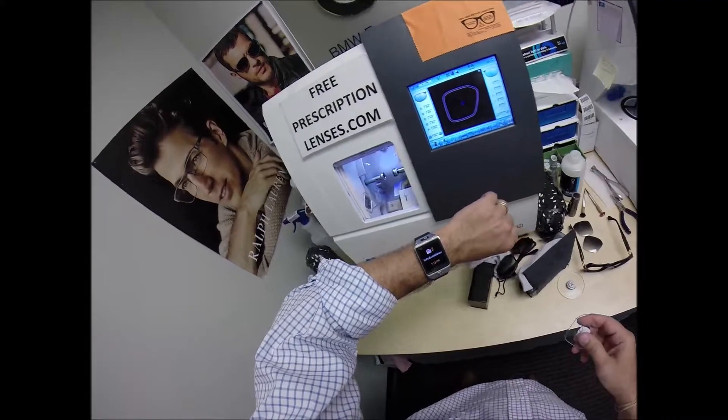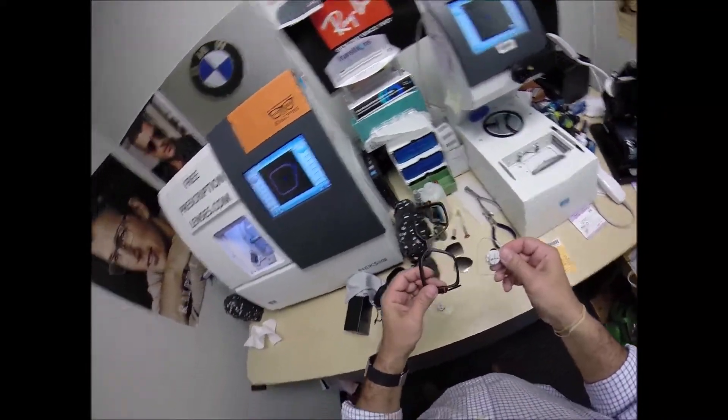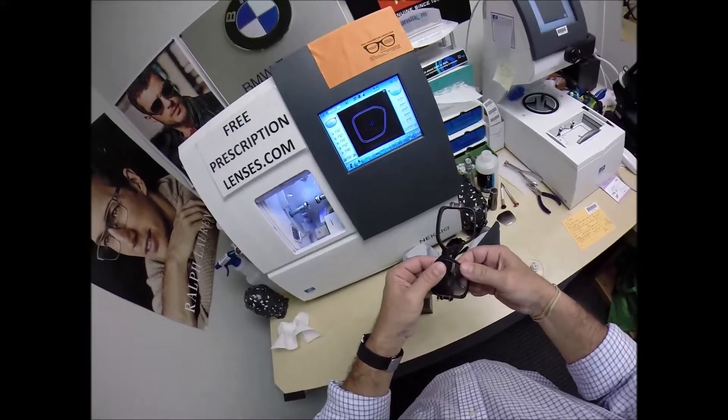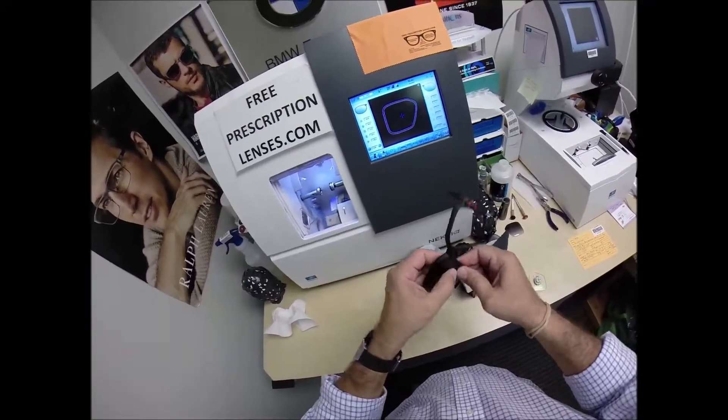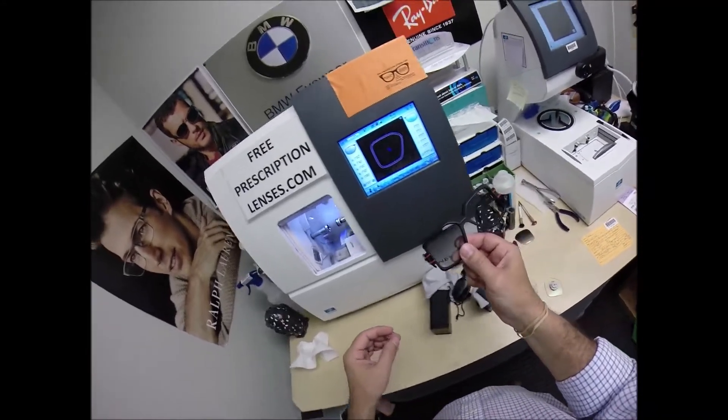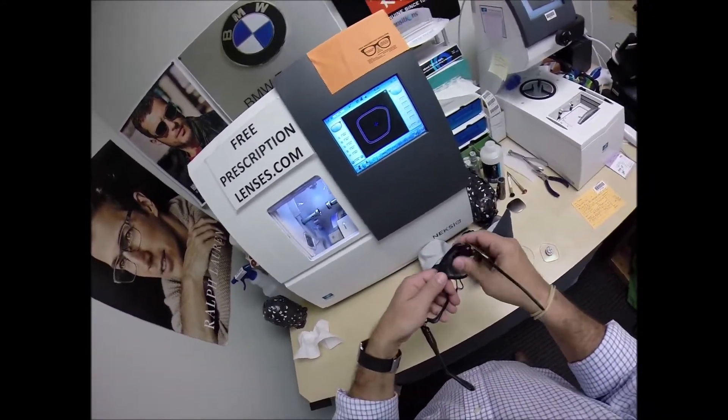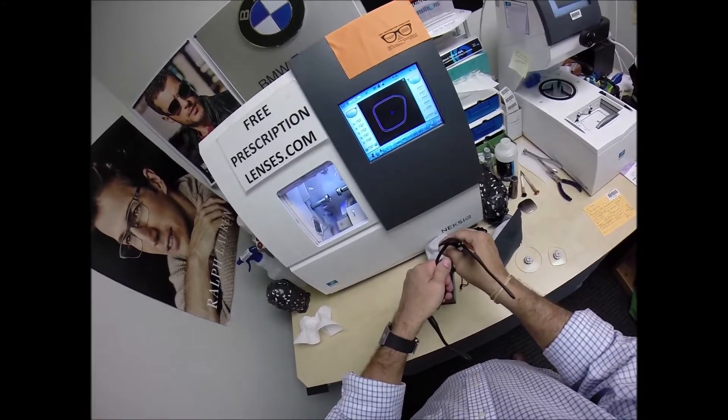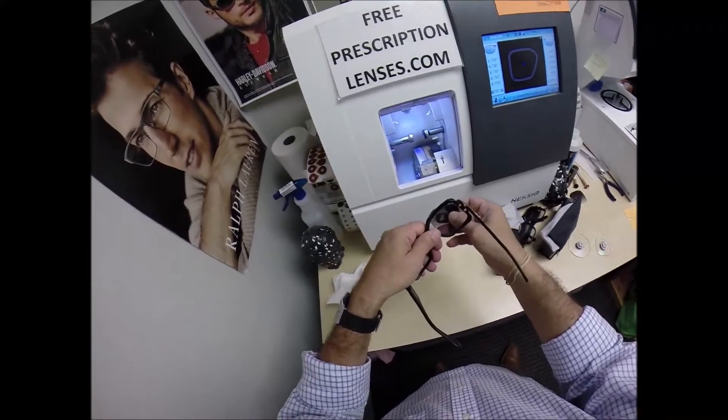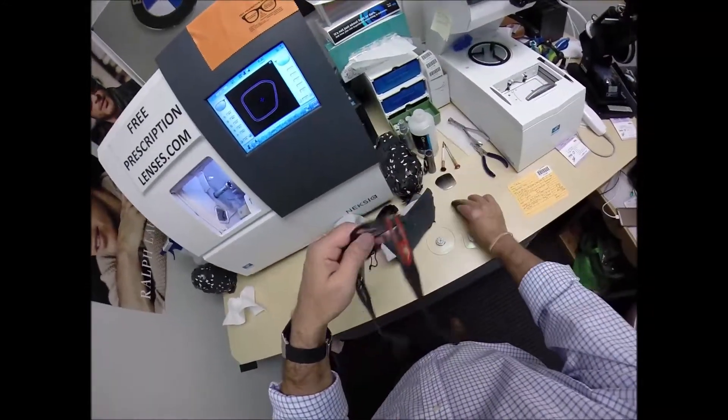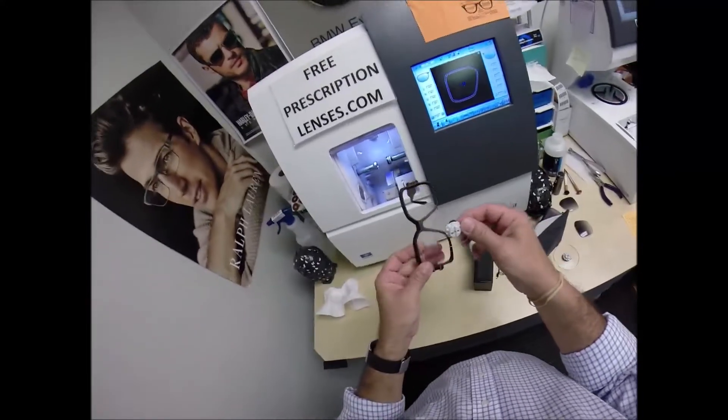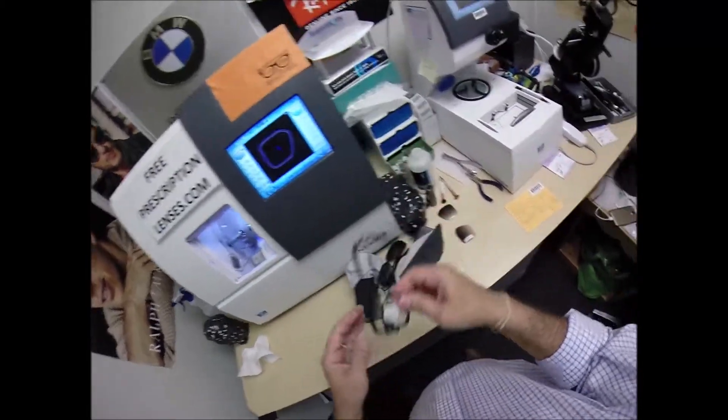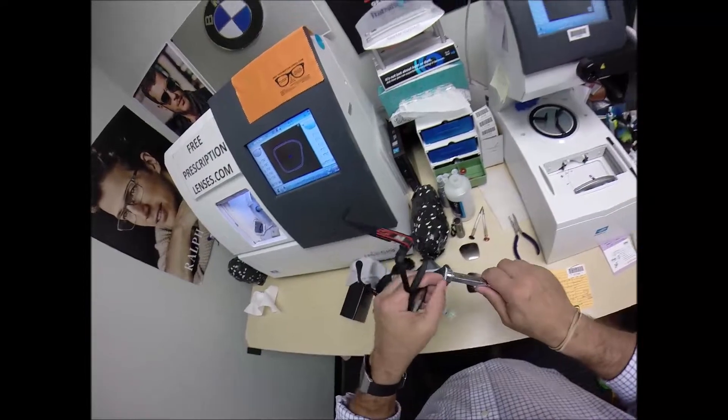So I'm going to dry everything off. Just got an email, got to order some G15 lenses. So here's what you're going to do. You've got the sunglass lenses in here that come with it when you're wearing your contacts. Put it in at the outside edge using your thumbs, push down the centers, it snaps in. To take the lenses out, turn the frame around and with your thumb at the nose, push downward. Out comes your sunglass lenses for when you're wearing your contacts. When you want to wear the prescription lenses, take the lens, tuck it in at the outside corner first, using the thumbs, push down at the nose, it snaps right in.